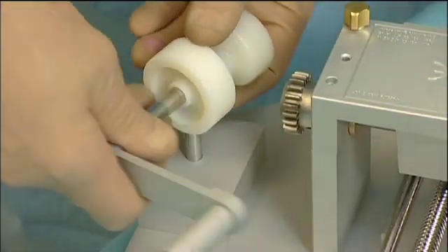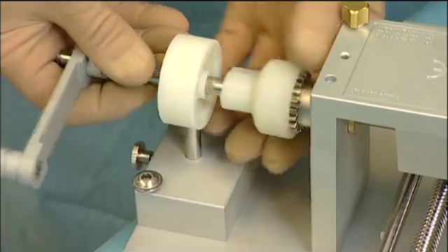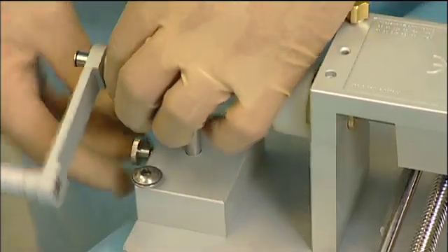The hand drive of this machine slightly differs from the cylindrical version. It is fixed with a screw.